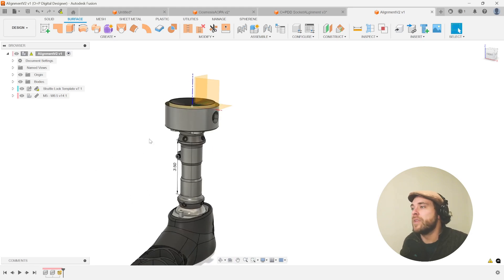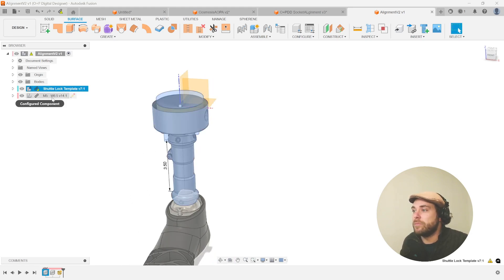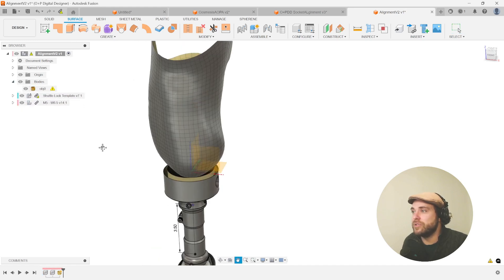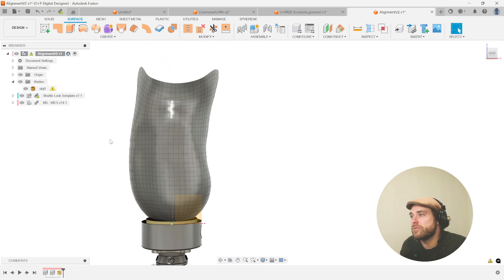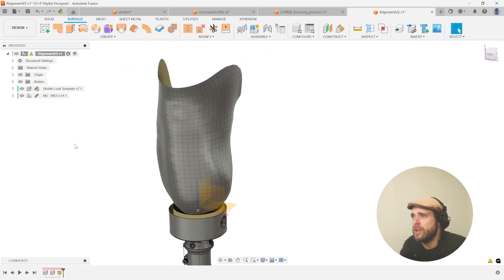In this initial template, I've got my pylon assembly, the distal terminal device if needed, and in the root I have my quad mesh which has been brought in on the origin as I aligned it earlier using one of my favorite mesh programs. We're ready to do the next step.